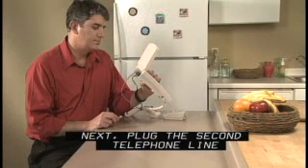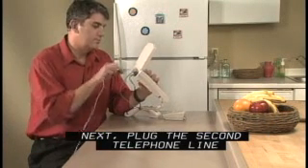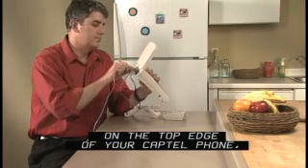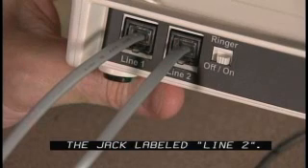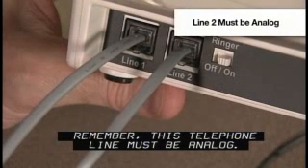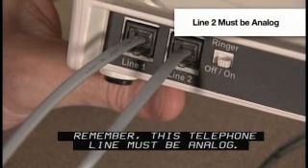Next, plug the second telephone line into the right telephone jack on the top edge of your CapTel phone, the jack labeled Line 2. Remember, this telephone line must be analog.